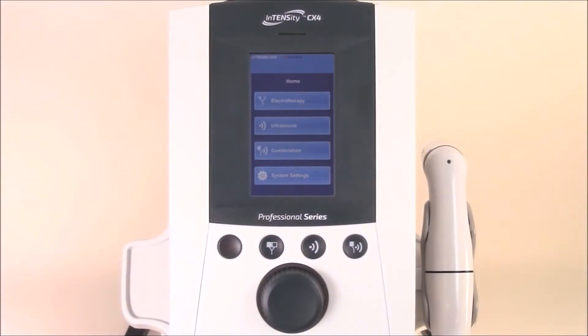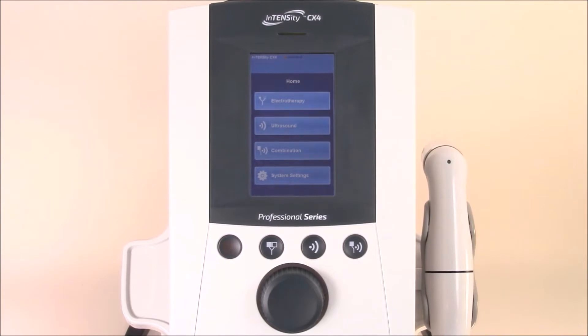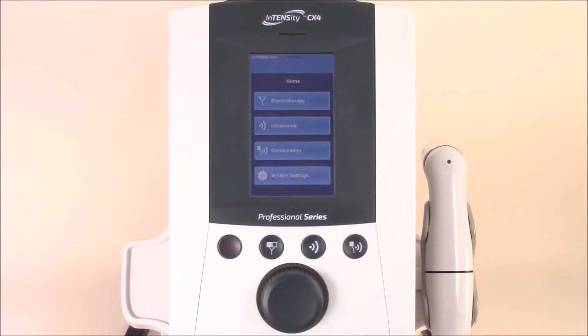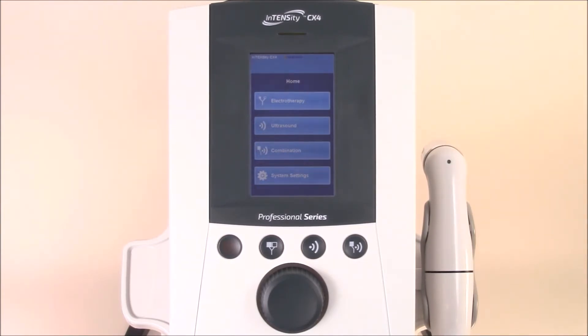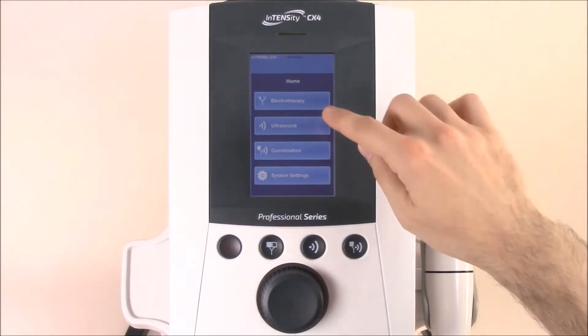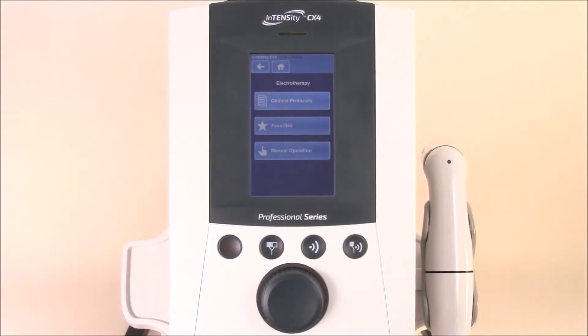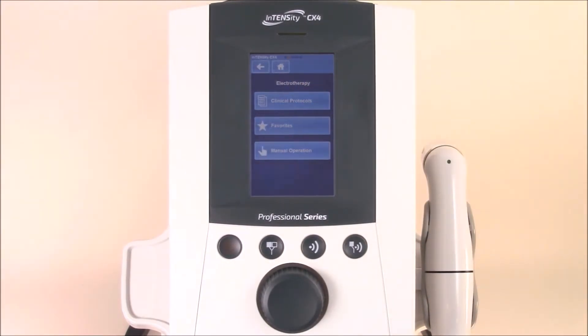Now that you're familiar with the quick access buttons, let's use the touch screen and dive further into the unit. First, let's select electrotherapy found at the top of the main screen. Simply hit the icon and it'll take you to the main page of the electrotherapy section.